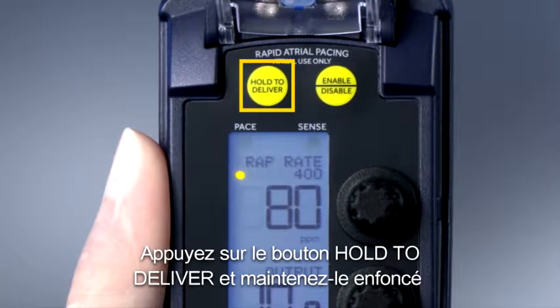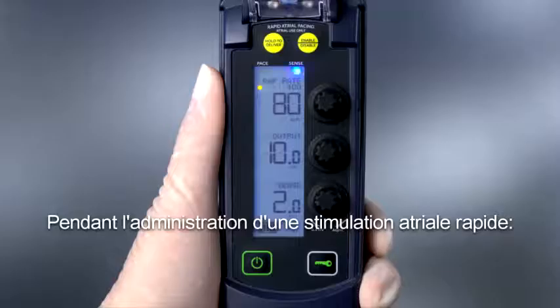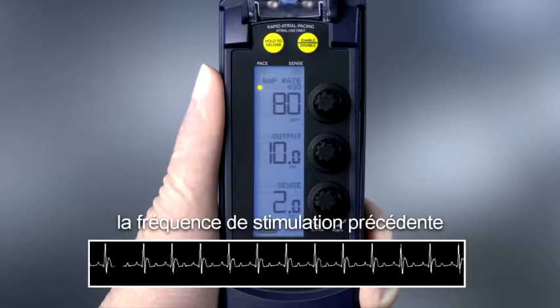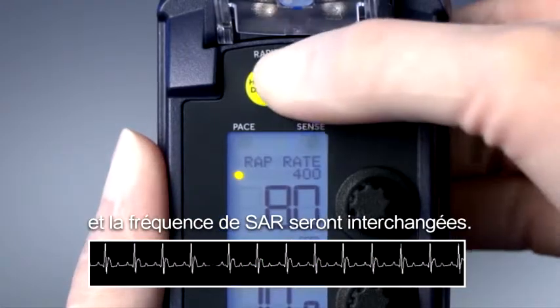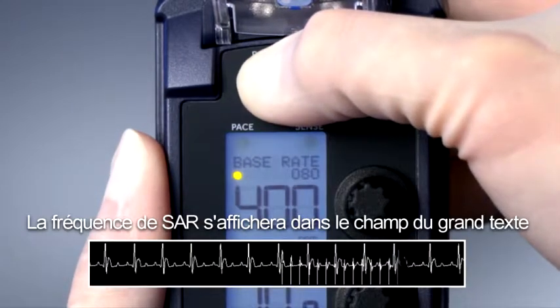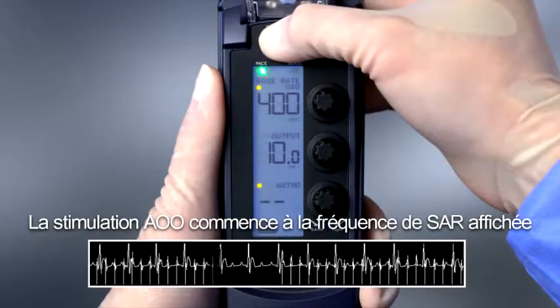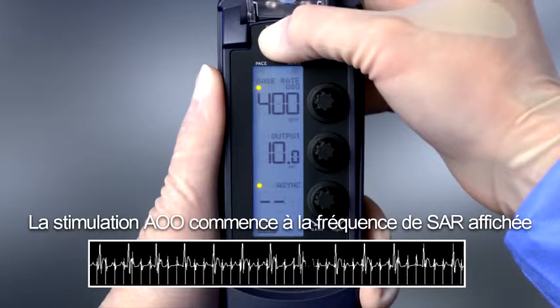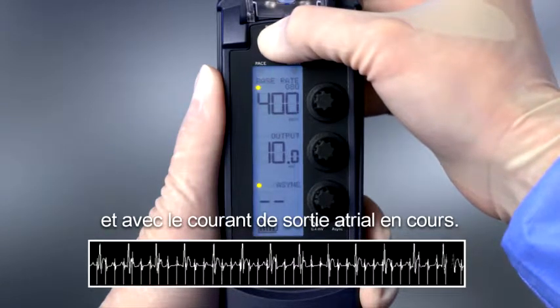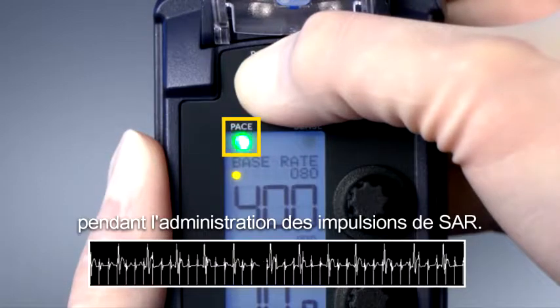Press and hold the HOLD to DELIVER button to deliver rapid atrial pacing. During rapid atrial pacing delivery, the previously set pacing rate and the RAP rate will switch places. The RAP rate will be in the larger text field until RAP delivery is finished. AOO pacing begins at the displayed RAP rate and current atrial output. The PACE LED flashes during delivery of RAP pulses.